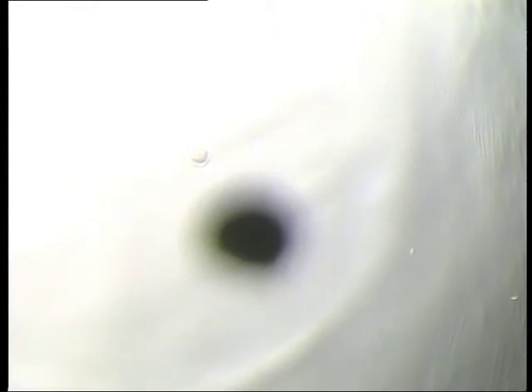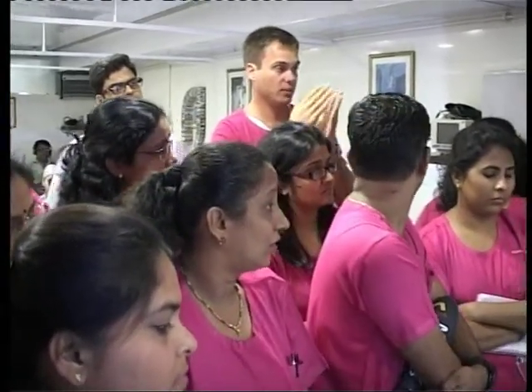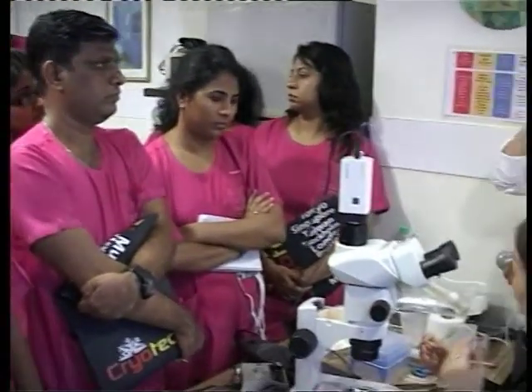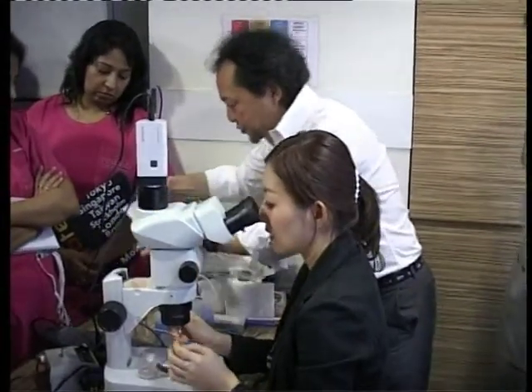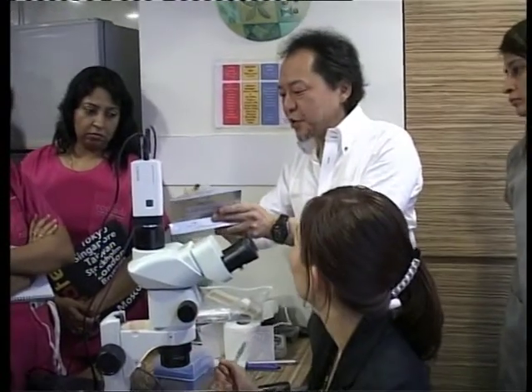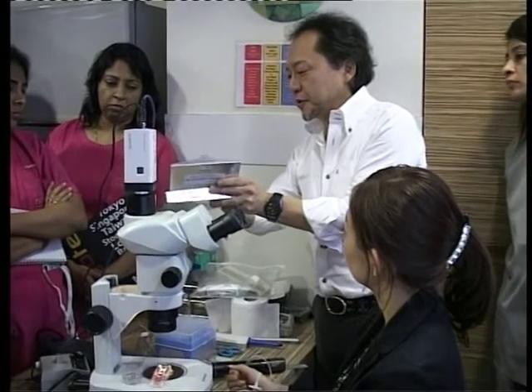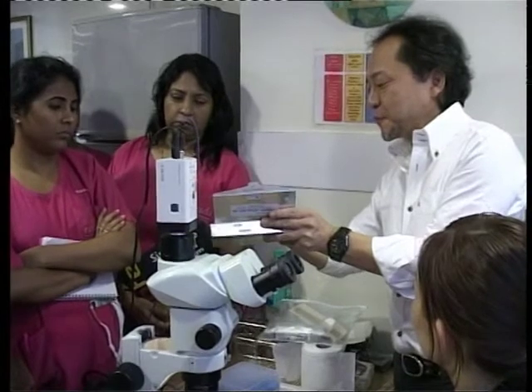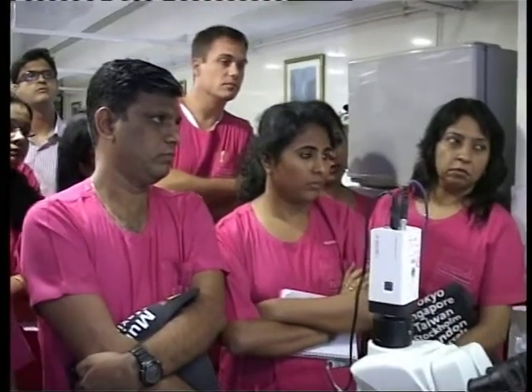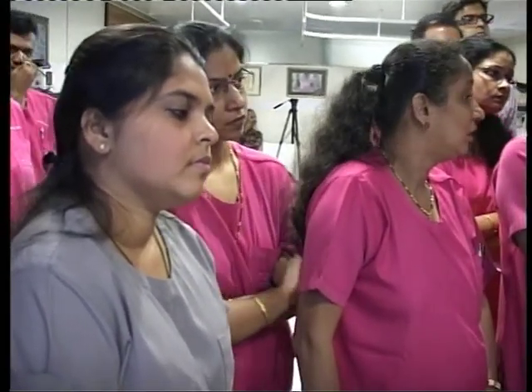Question: when you do the maximum of nine oocytes, do you have nine drops on the cryotech? You do groups of three — three, three, three — so a maximum of three drops each time. You make an empty drop, then a drop containing oocyte, keeping the minimum number of drops. If you have three oocytes in the pipette — one, two, three — you expel to the sheet, make one drop, make an empty drop, then when the oocyte comes to the top, make the drop containing it. Make the minimum number of drops.